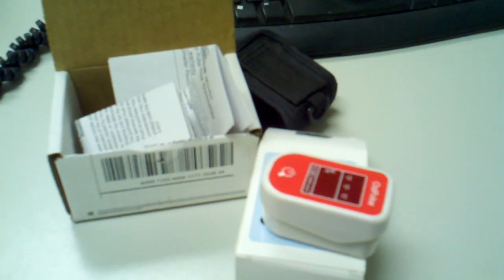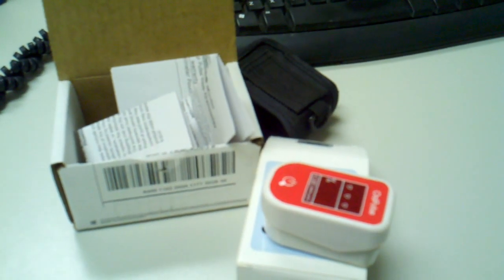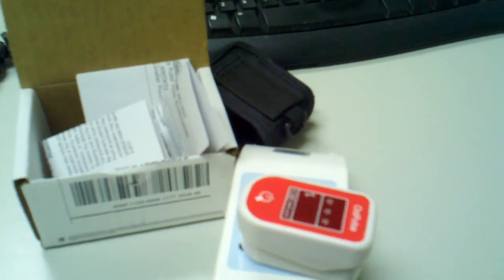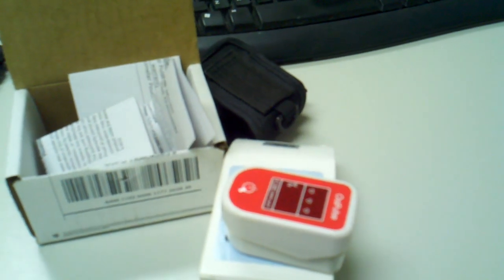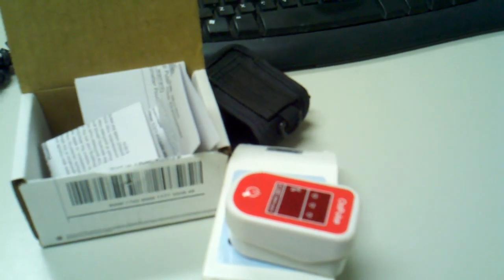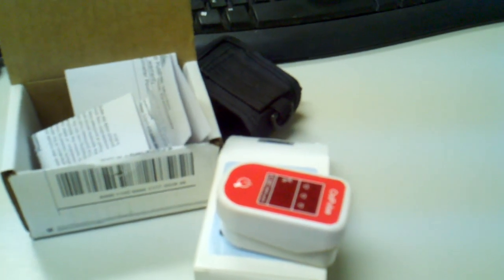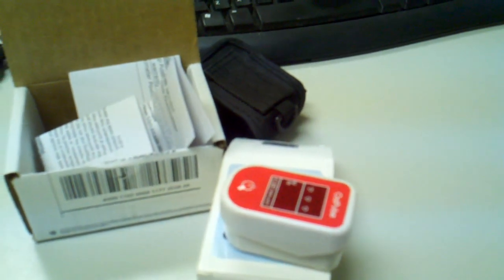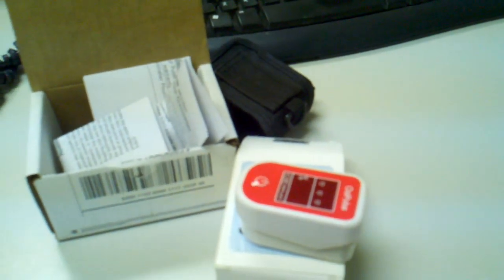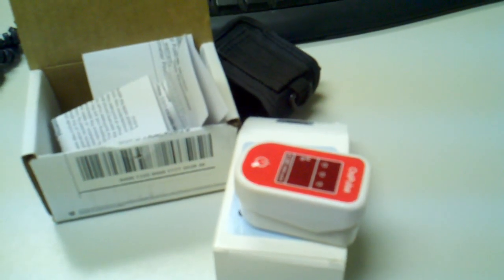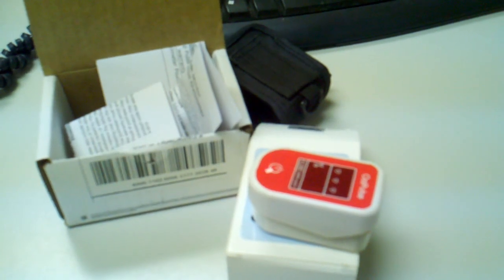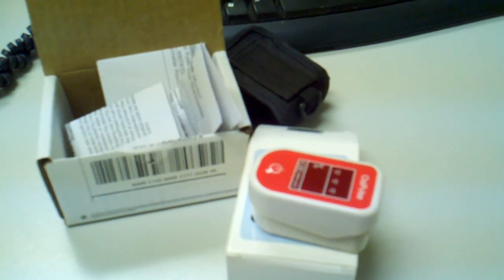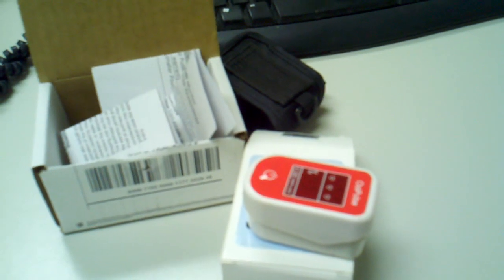These wavelengths send out a signal, and between the oxyhemoglobin and its deoxygenated form, it will set a ratio of oxyhemoglobin and deoxyhemoglobin, which is calculated from the absorption of the red and infrared light. This tells you what the O2 level is in accordance to your heartbeat and the arterial blood vessels which expand and contract with each heartbeat.